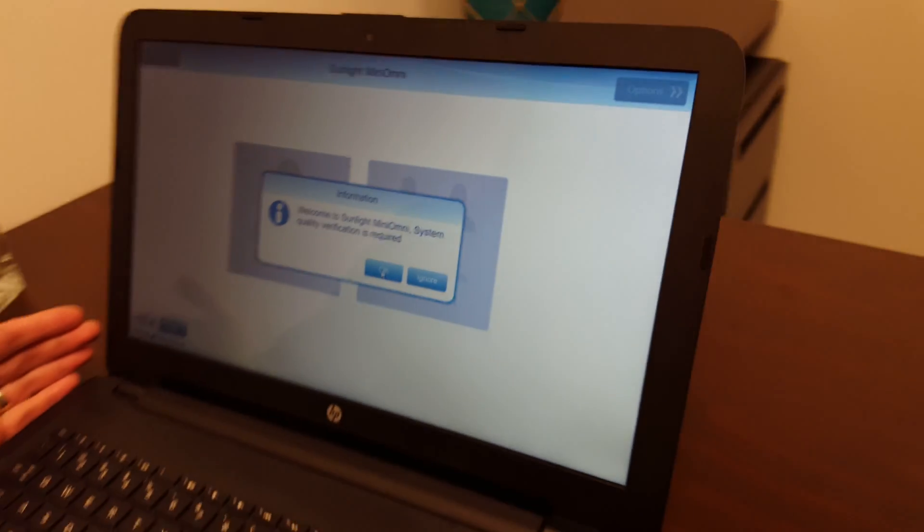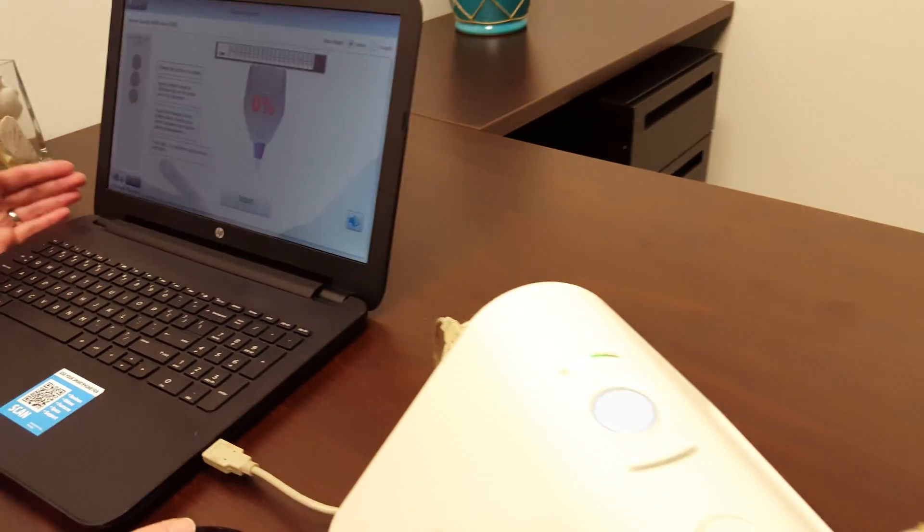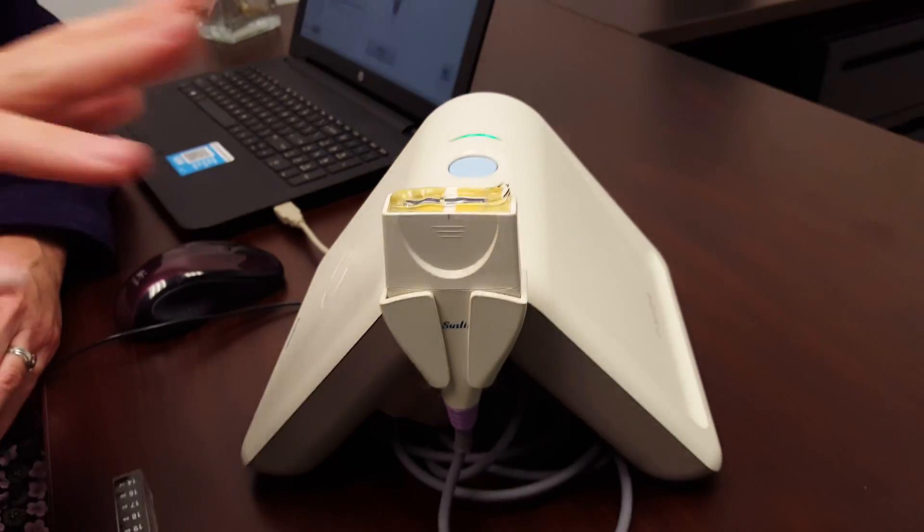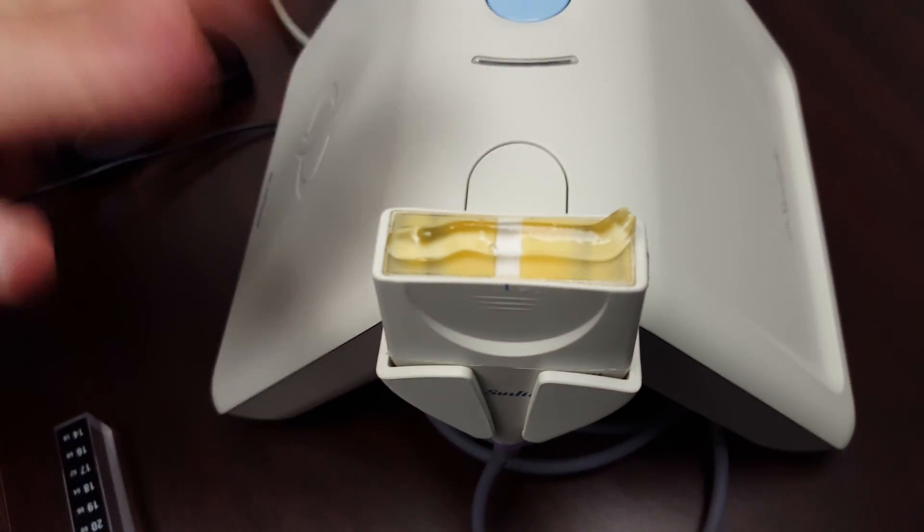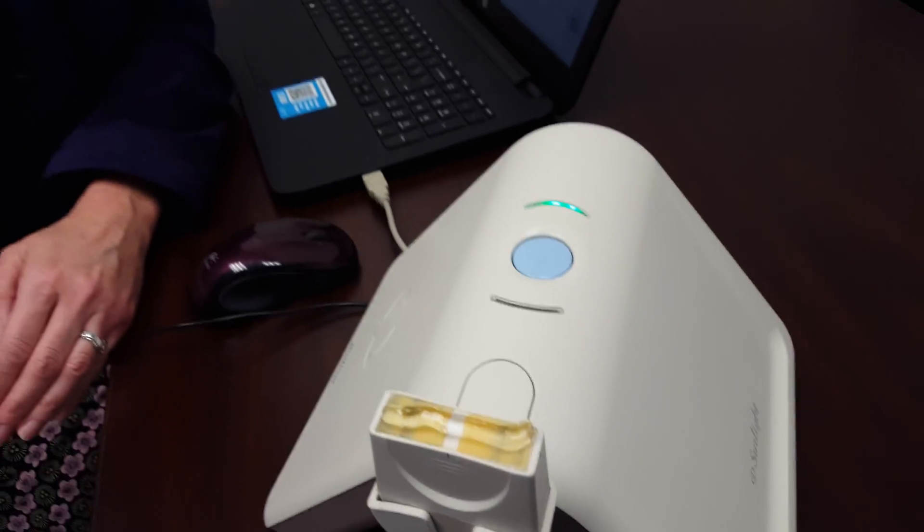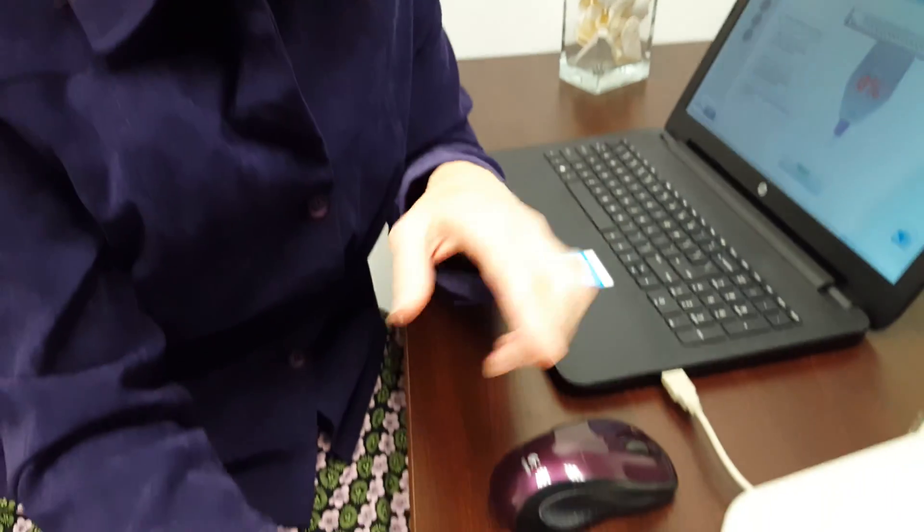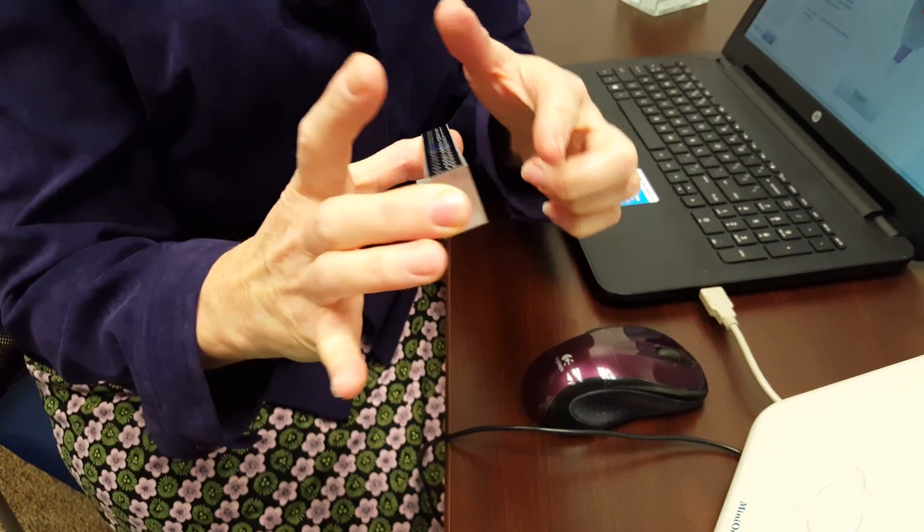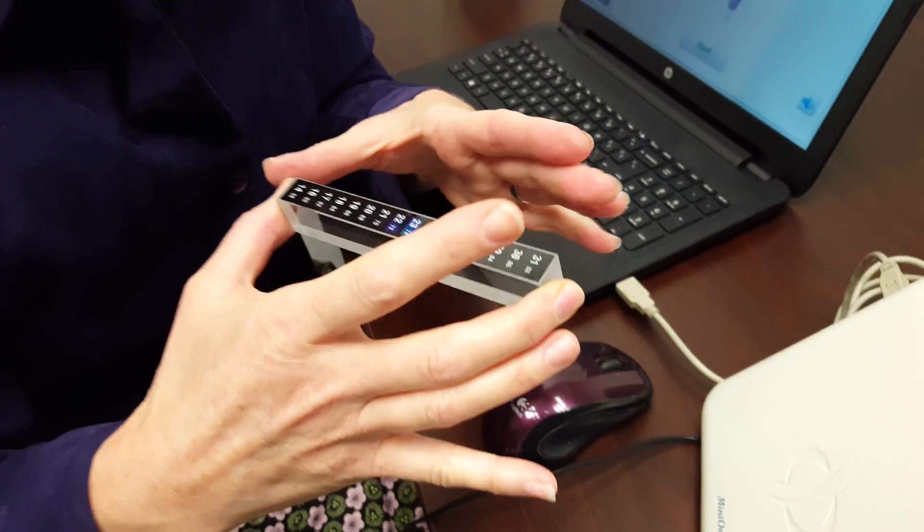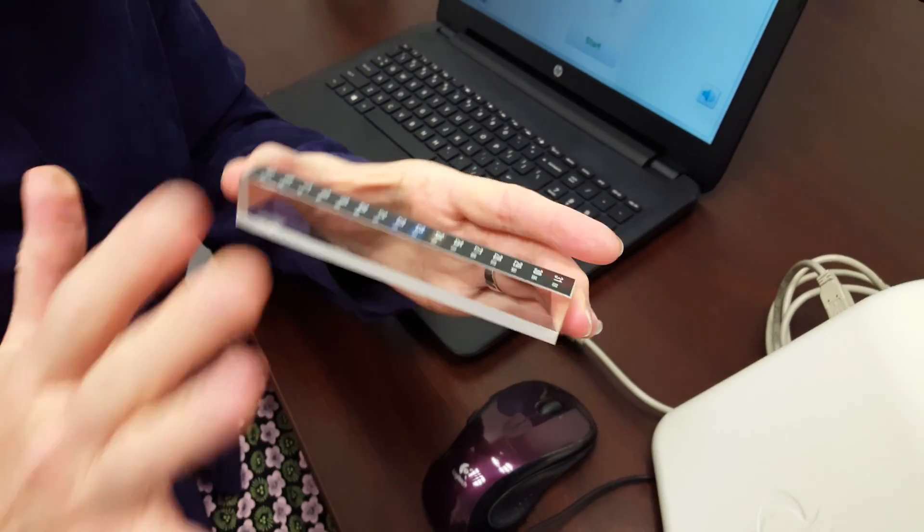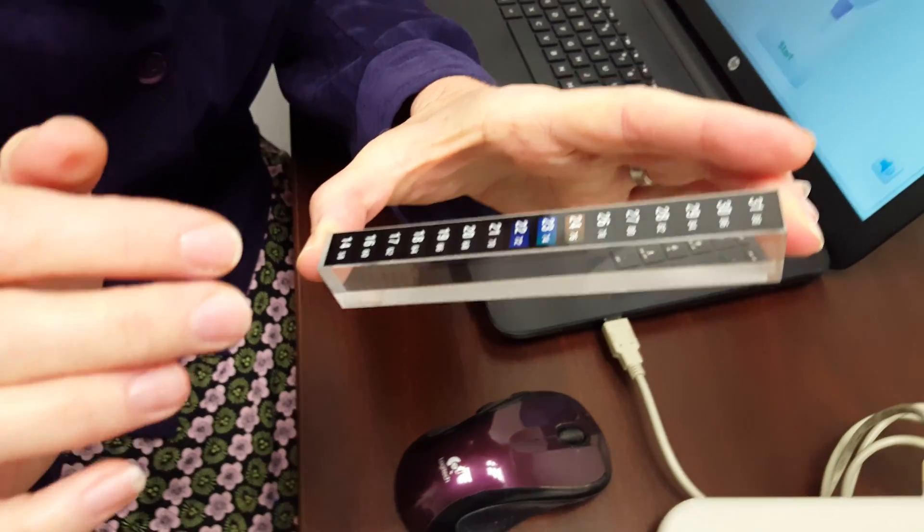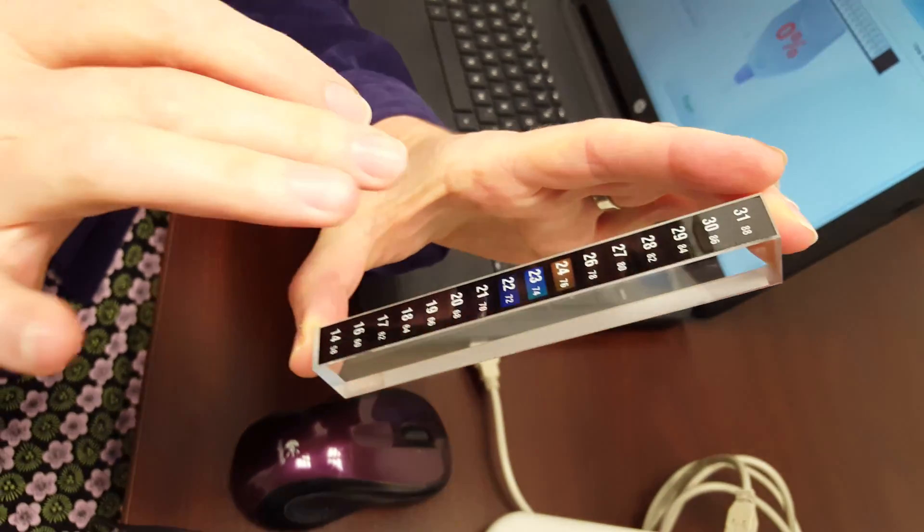So you say okay, and you want to have a bit of ultrasound clear gel on your probe. You want your phantom piece and you want to pick it up like this, making sure you're just touching the ends. You don't want to affect the temperature in any way, and so you have two sides.